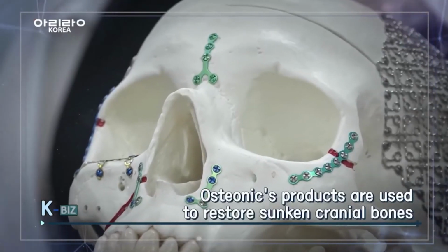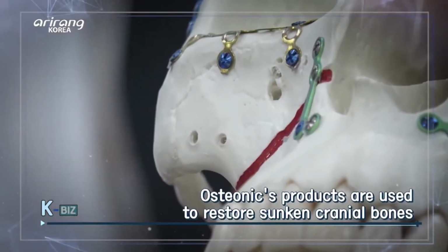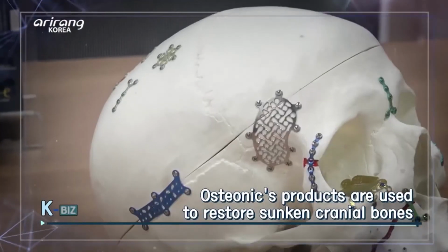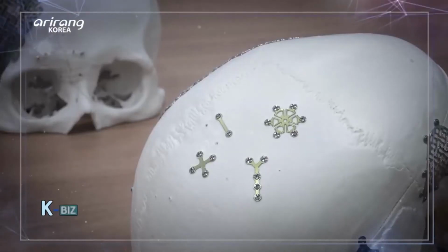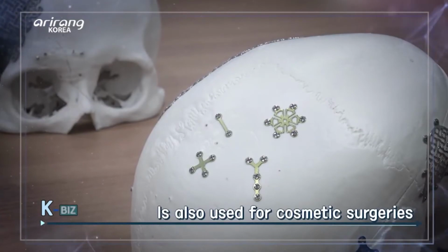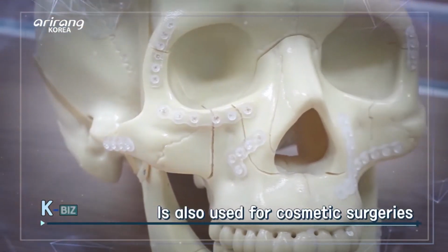Osteonic's CMF products make our appearance look even more beautiful and handsome. It can restore a sunken cranial bone caused by brain surgery. These products are also used for cosmetic surgeries, such as facial contour surgeries and double jaw surgeries. So what are the features of your company's CMF products?